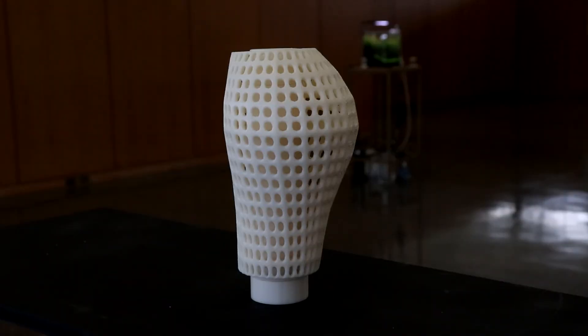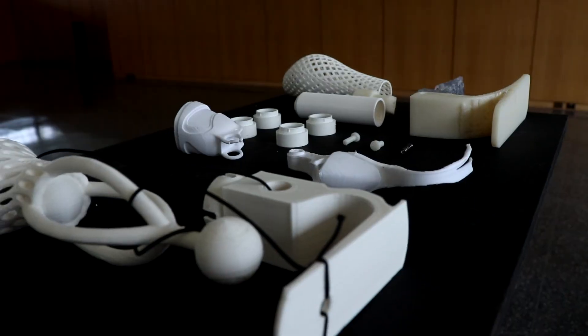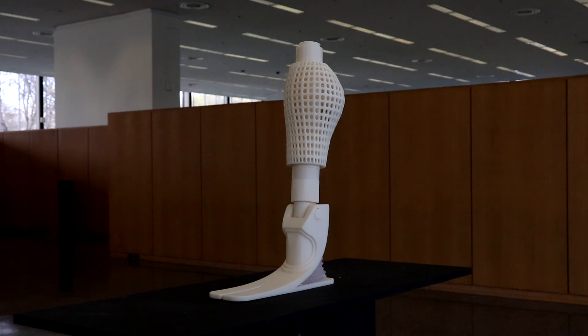Lastly, the users can create a customized parametrically designed calf. We hope to continue researching and creating new designs. Thank you for your support and interest in the extendable leg.